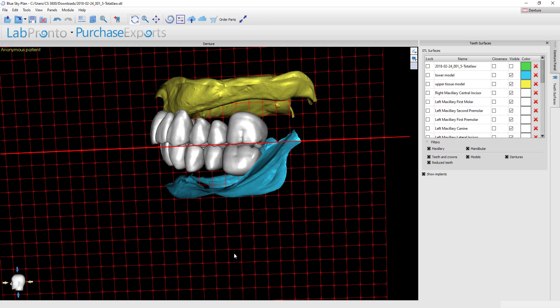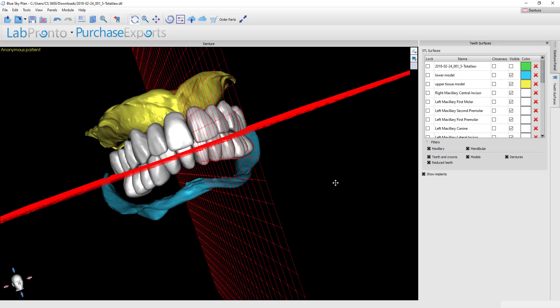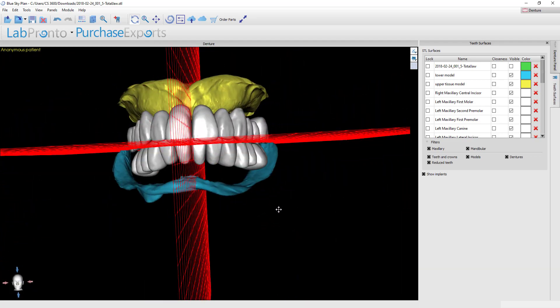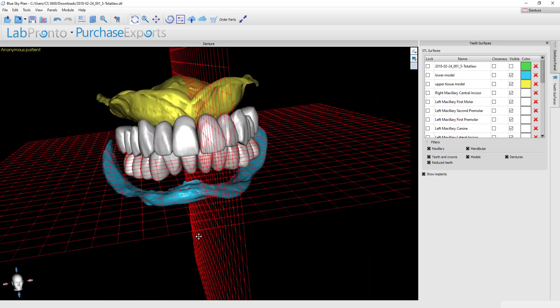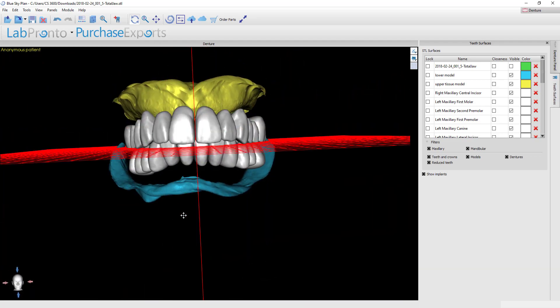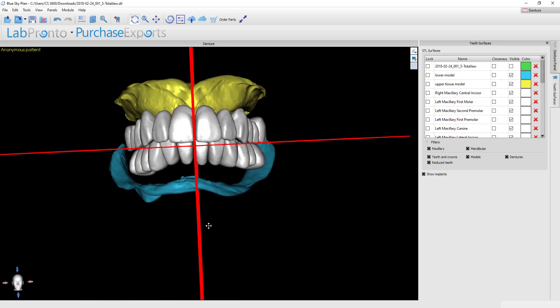Now with those second molars gone, this looks like it's fitting much better in the overall shape of the arches. We're now 90% of the way done with our setup and the only thing that I'd like to do now is to make sure that the teeth are sitting over the center of the ridge. Remember that when you pull in the overall dentition they have just a particular position they've been set in, and your patient may have a wider or a narrower arch and so you can move around the teeth so that they center over those ridges a little bit more accurately.